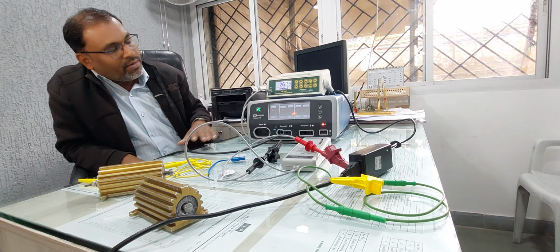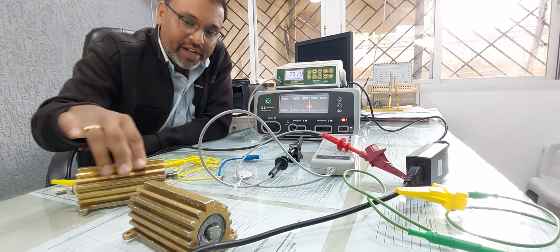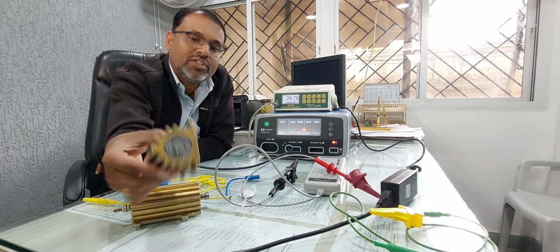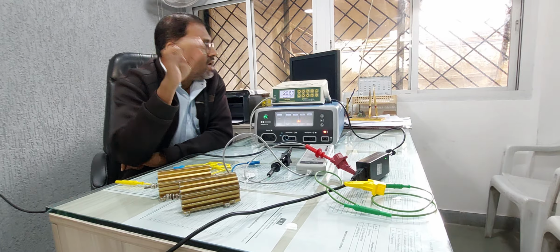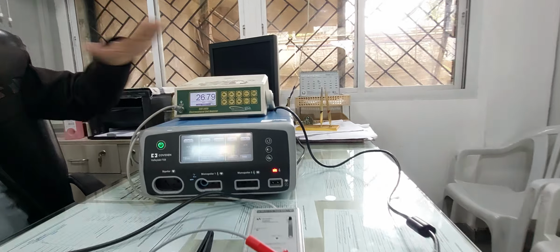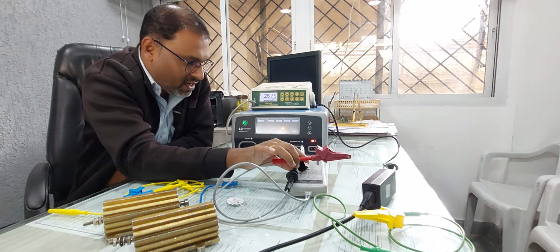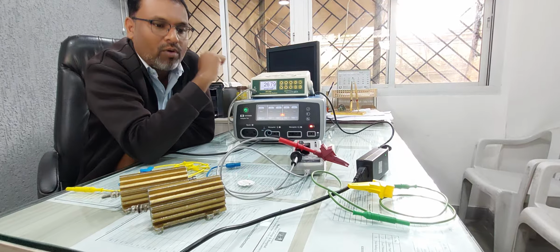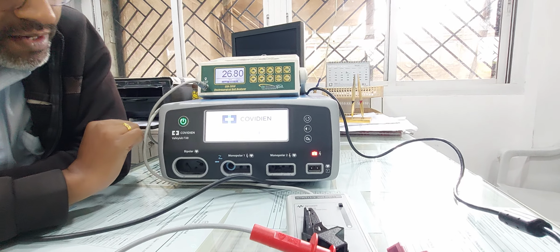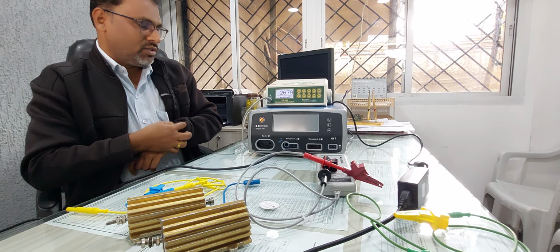So whenever we are going to calibrate any type of cautery, it requires, see, now this is a Covidien cautery. For the voltage calibration it requires a 5 kilo ohm resistor, and for the current calibration it requires a 5 ohm resistor, right? And an electrosurgical unit analyzer is required to adjust the values. This is a differential probe, we can say a differential scope, right? Now I will show you how to perform the voltage calibration. First you shut down the cautery. Okay, so initially I will show you step by step.